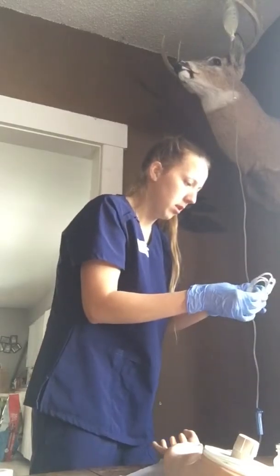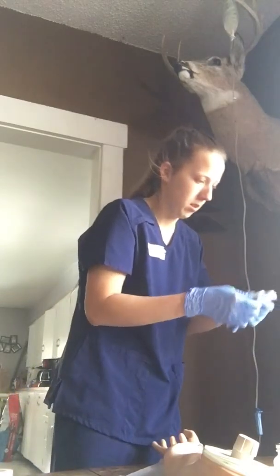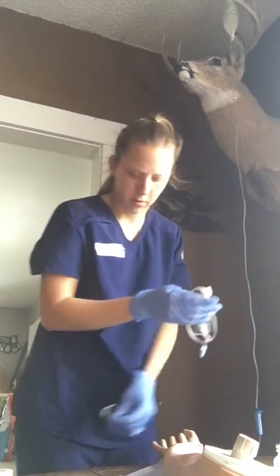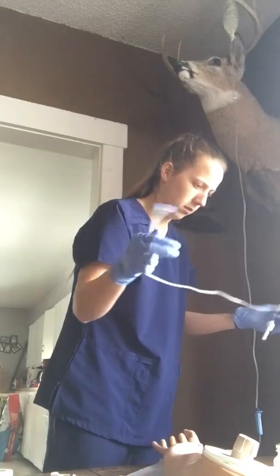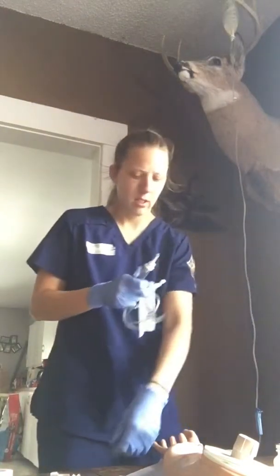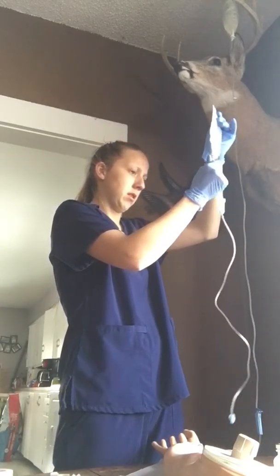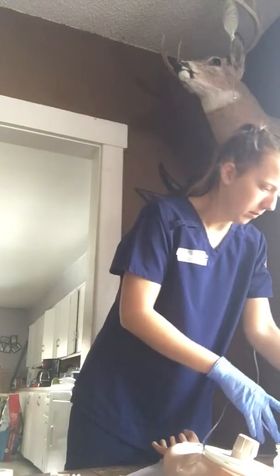First, I'm going to make sure the clamp is closed. I'll take the cap off, being careful not to touch the spike tip, and put it into our bag. We're going to prime it until it's half full, and it is clamped.